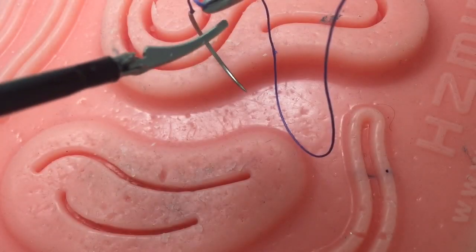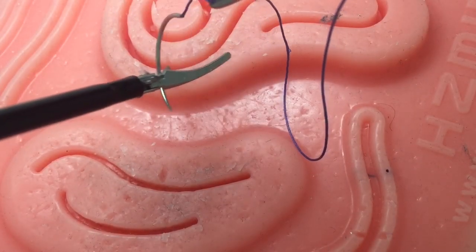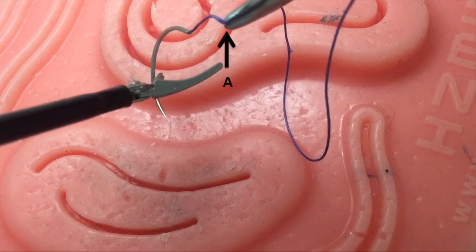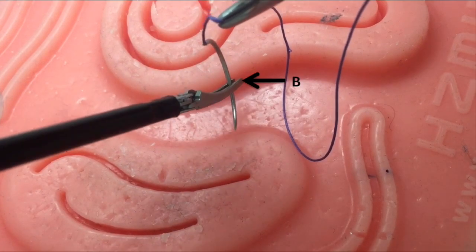Needle handling. Once the needle is within the box trainer, maintain the right grasp at point A and loosely grasp the needle with your left instrument at point B.